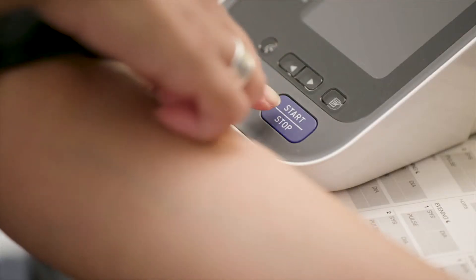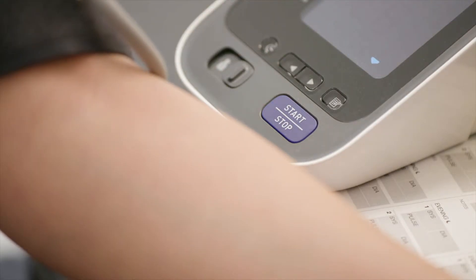Typically you can measure your blood pressure with just a push of a button. Make sure the cuff you're using is the right size and fits properly — if you are not sure, ask your care team. Many factors affect blood pressure results, so it is critical you follow the instructions your care team provides on how to properly self-measure. Watch this video closely, and if you have any questions ask your care team for help before getting started.